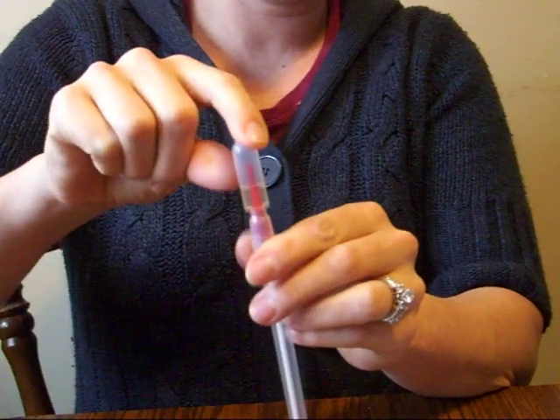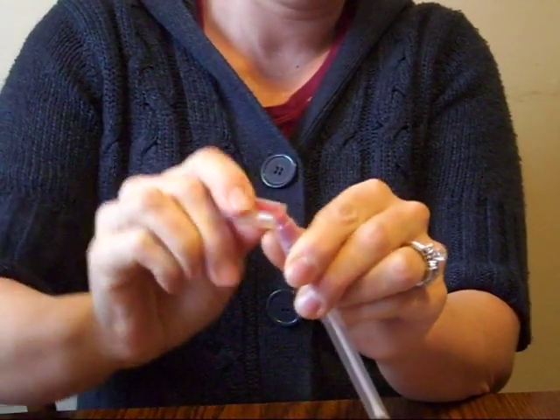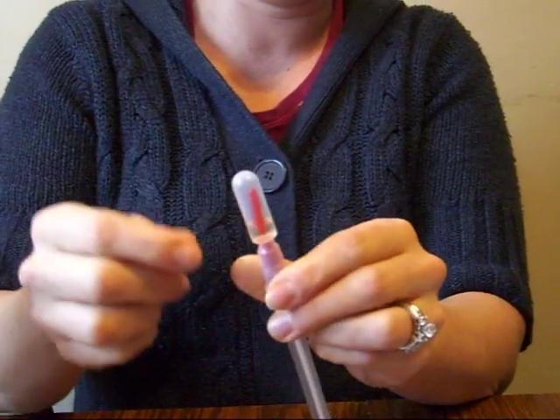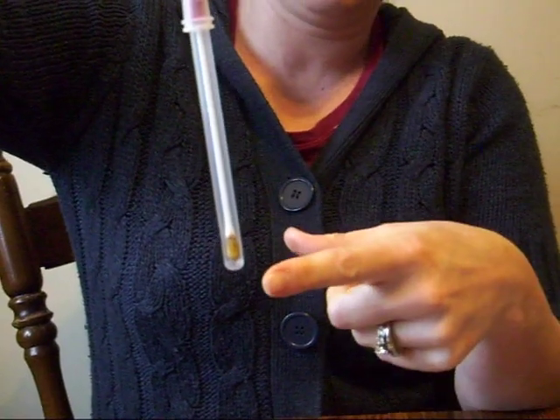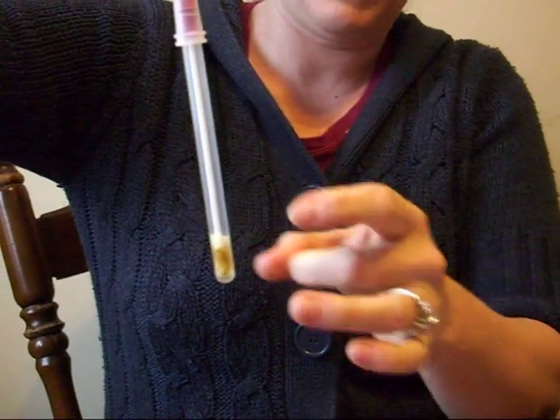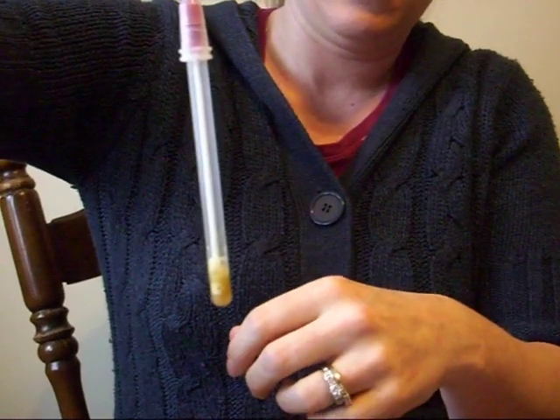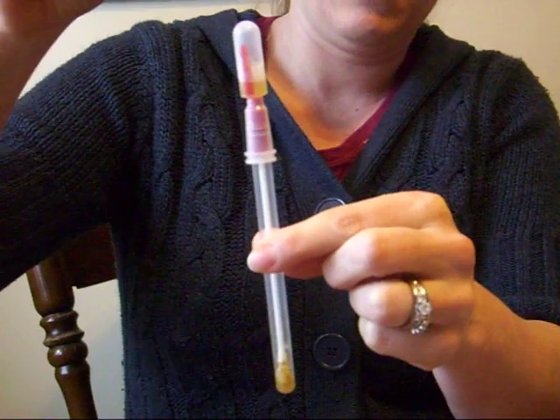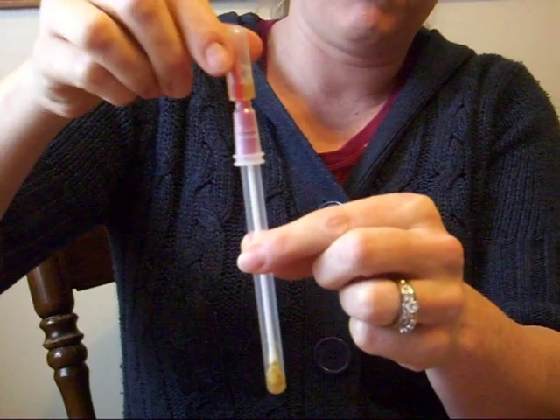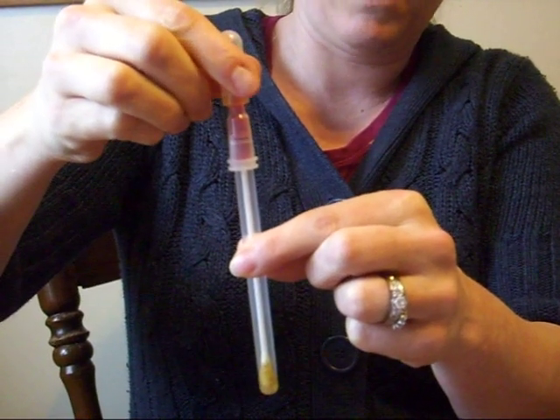At the very top, you'll see the red stick sticking up in the bubble of liquid. You're going to bend it to the left and to the right so it's completely broken loose. Then squeeze it — the fluid comes down to the bottom where your stool is. I like to snap it with my hand, then let go of the top, and it gets sucked back up. I like to do that about five times just to make sure it's mixed well.